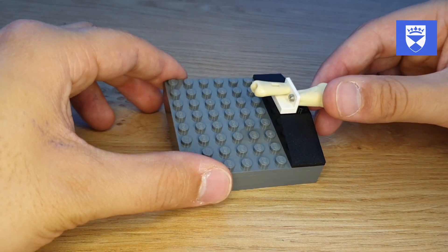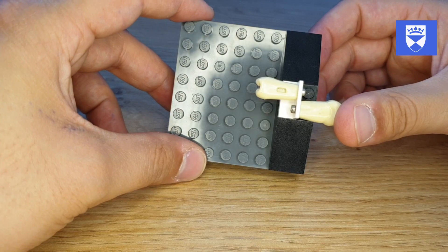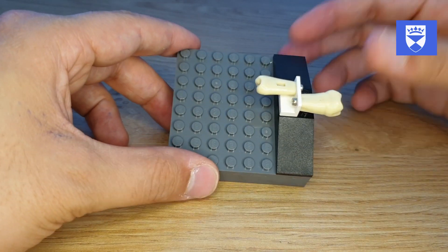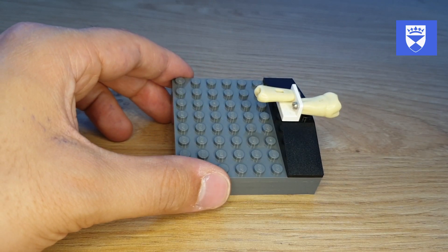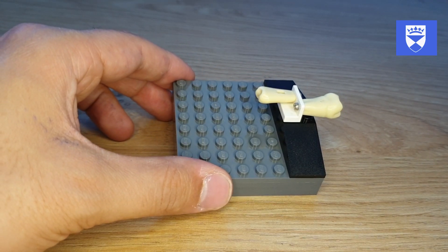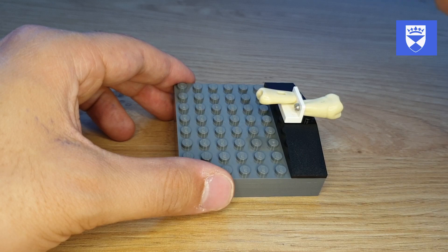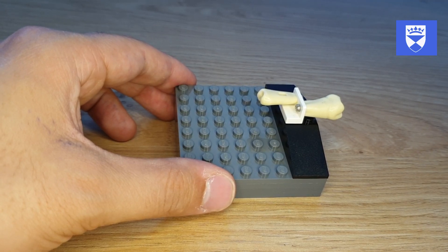The current course we're teaching covers the skills required before this, which is just about how to use a handpiece, how to hold it correctly, the ergonomics of the handpiece, and its safe use for cutting predefined cavities.